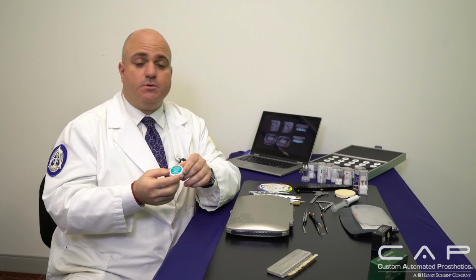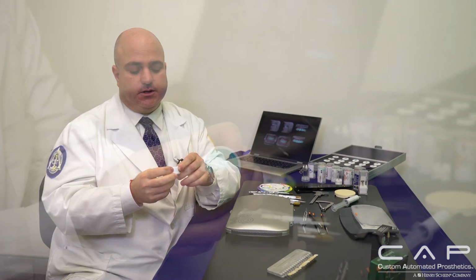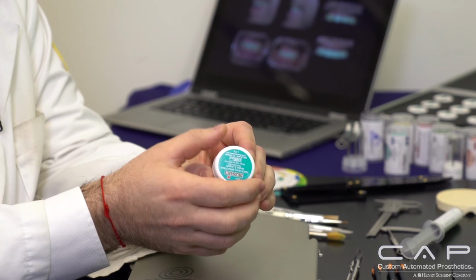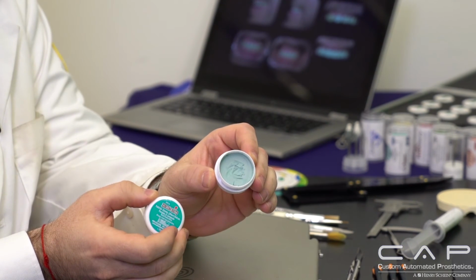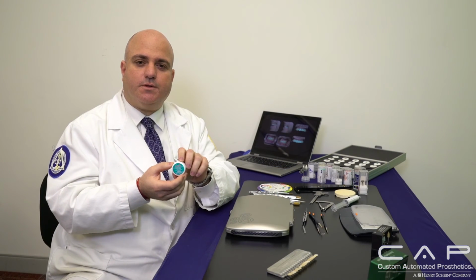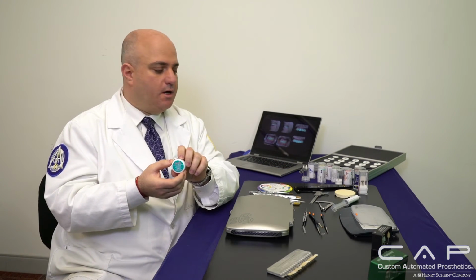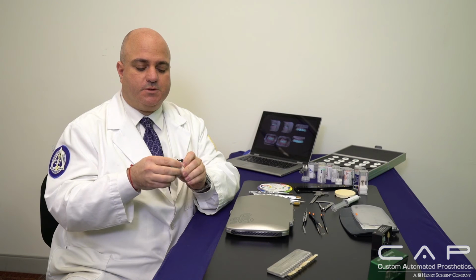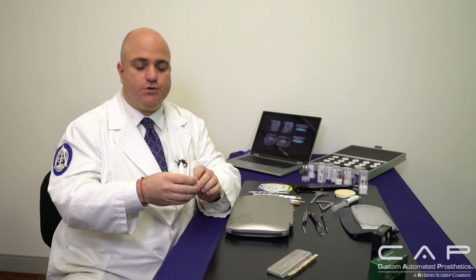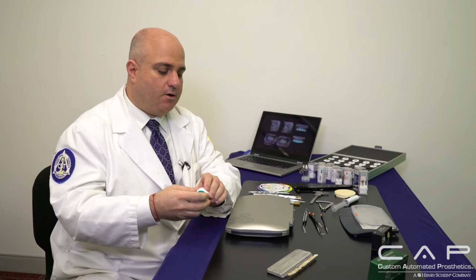So depending on what I'm trying to achieve, I would either use the Zircon Bright, which is a paste. It's very quick and actually remarkable how fast it shines certain areas. So I just treat it lightly with a rubber wheel prior, and then I use a bristle brush with this paste, and it really shines up nicely. And the thing is that it's controlled. It's completely controlled all throughout.